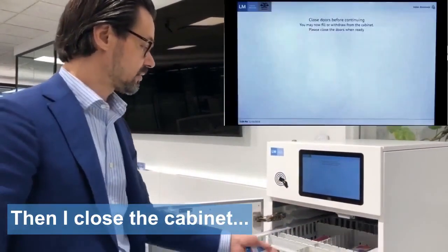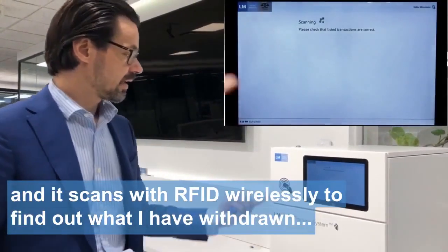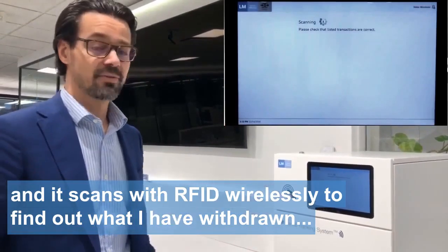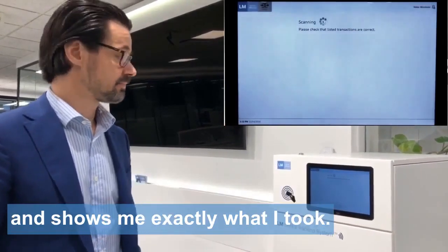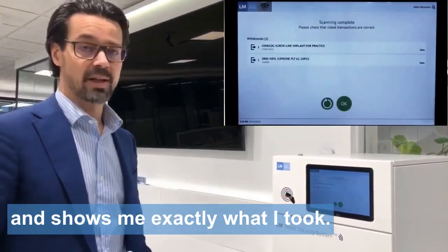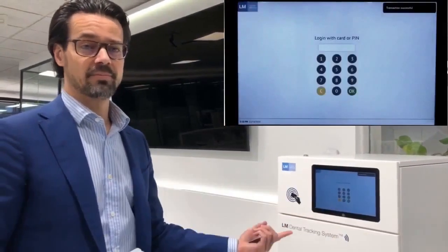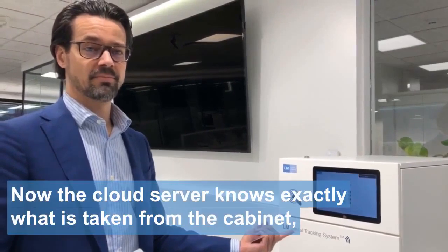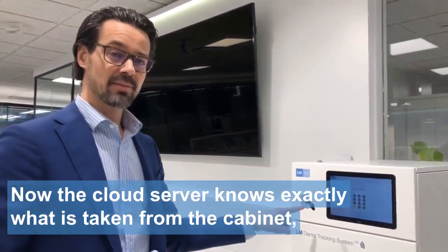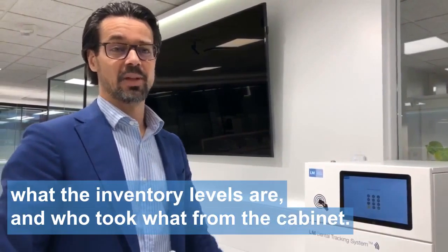Then I close the cabinet and it scans with RFID wirelessly to find out what I withdrew. And it shows me exactly what I took. After clicking OK, it sends the information to the database. And now the cloud server knows exactly what's taken from the cabinet, what the inventory levels are, and who took what from the cabinet.